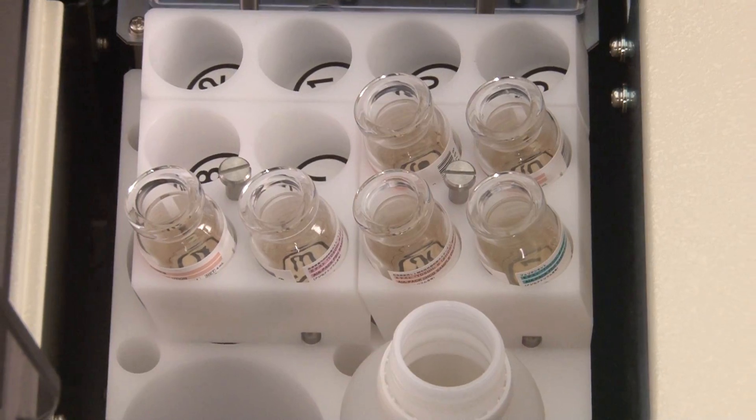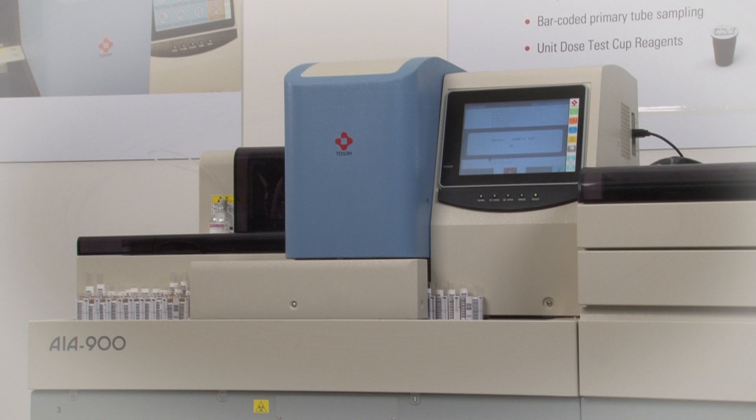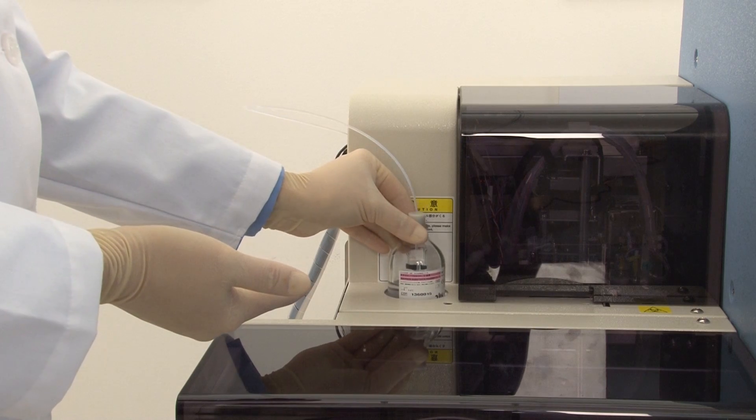auto dilutions and pre-treatment, as well as TOSO's unique unit dose test cup technology provide the highest quality and reliability on an easy to use system.